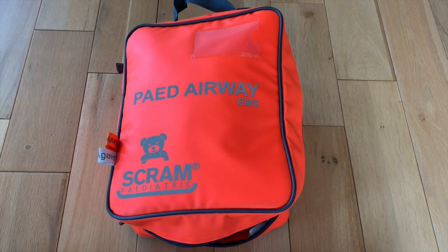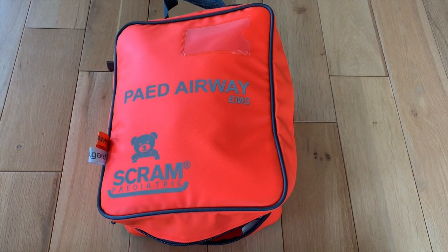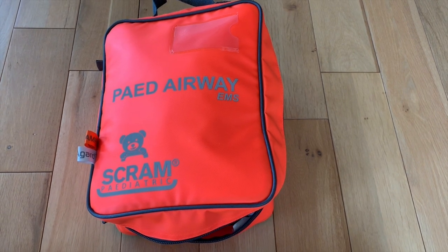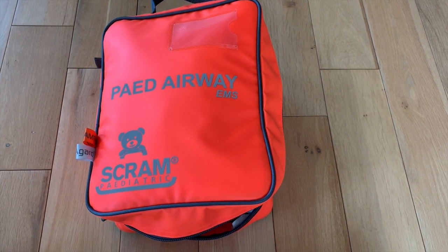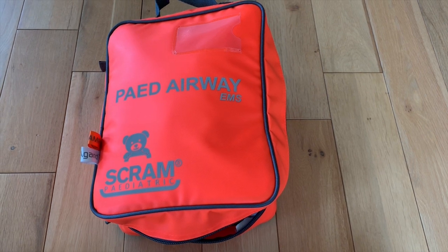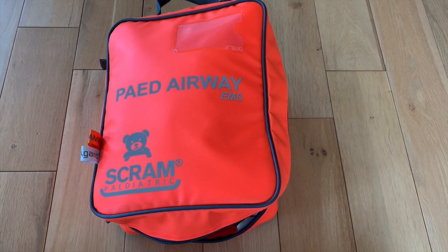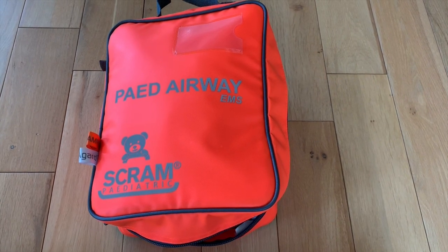Let's now take a look at PED EMS Scram. It's designed for the pre-hospital environment and to complement an already established adult system, as it covers a weight range from birth to approximately 40 kilograms, depending on how you choose to stock it.